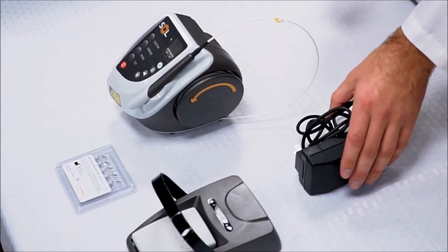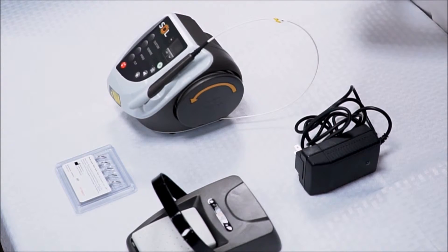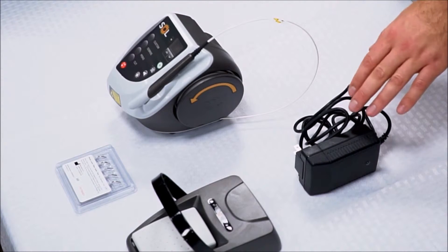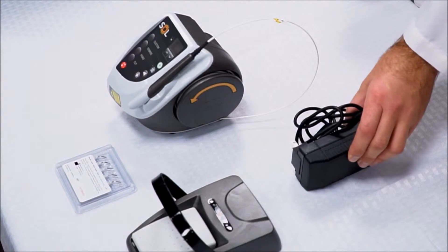Of course, you have the power supply to plug the unit into the wall to charge it. It is battery powered, so you don't have to always have it plugged in, but you will want to charge it at the end of the night.